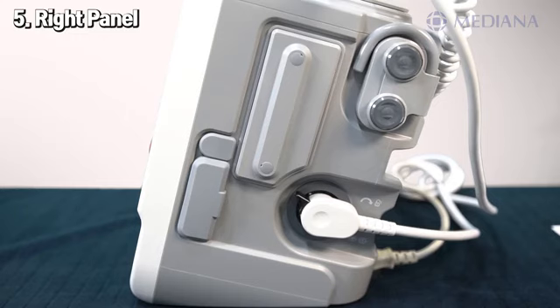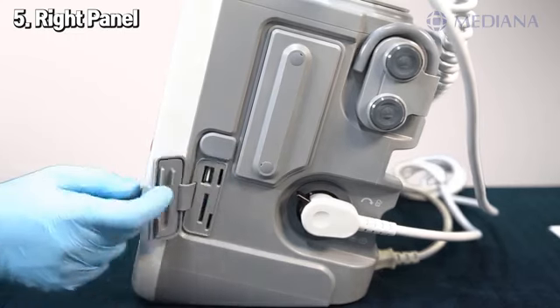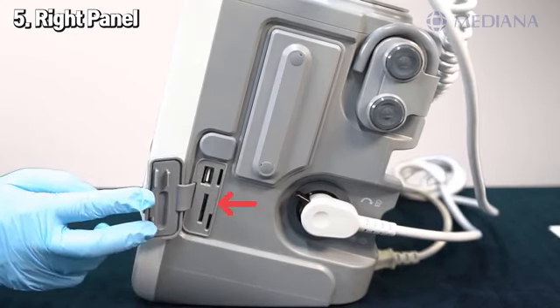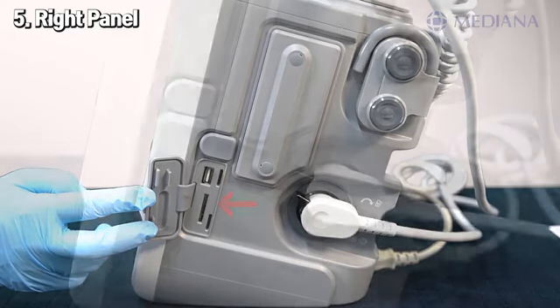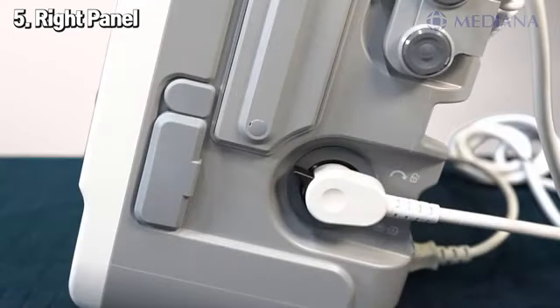As we go on to the right part of the device, you can open this lid and there are two things. One is the connecting part for CPR feedback and the other is the SD card insertion hole. The card is used to update the system software, load voice prompt data, and download the trend data. The connector part is designed to be user-friendly so that the user can easily connect paddles or pads.